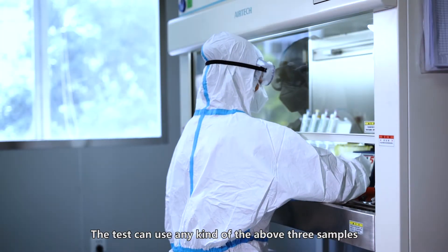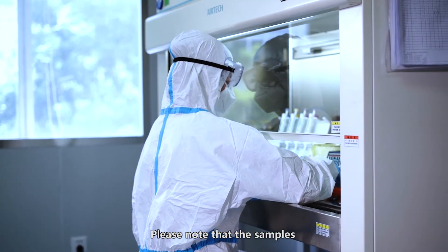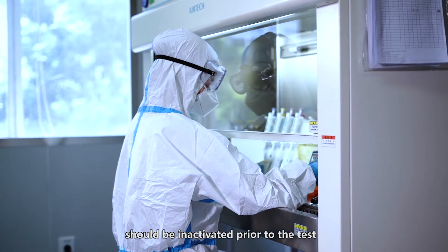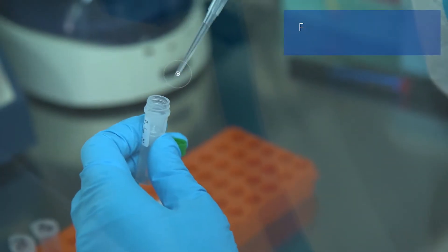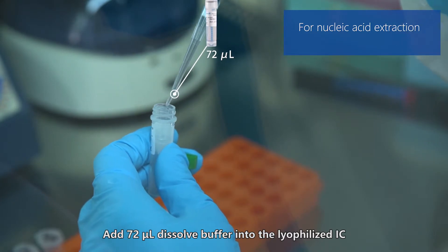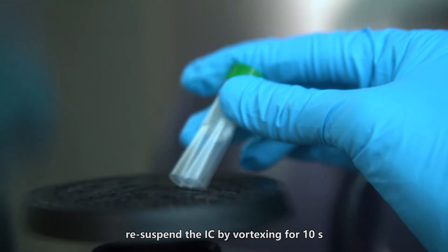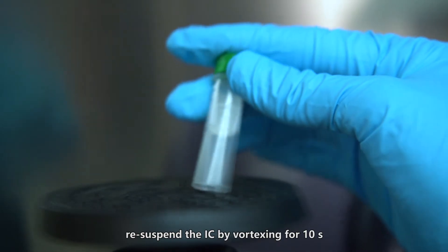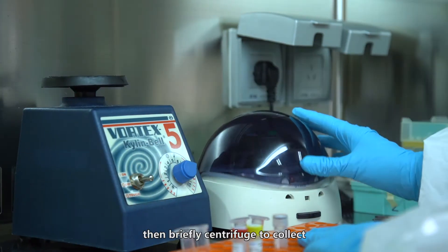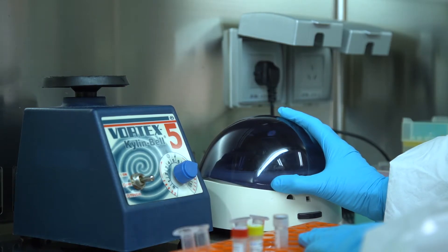The test can use any of the above three sample types. Please note that the samples should be inactivated prior to the test. Add 72 µL dissolved buffer into the lyophilized IC. Re-suspend the IC by vortexing for 10 seconds, then briefly centrifuge to collect.